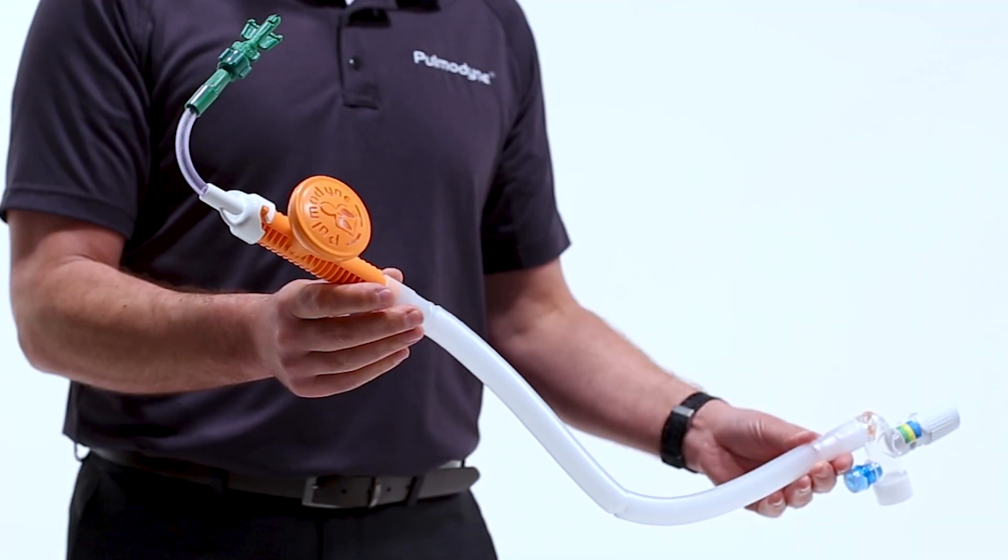The last accessory is the O2 Rescue filter. For the patients that have a communicable respiratory condition, you can attach the filter at the elbow of the BiTrac ED mask interface and filter any exhaled contaminants. Keep in mind, this means you cannot nebulize the patient when the filter is attached.